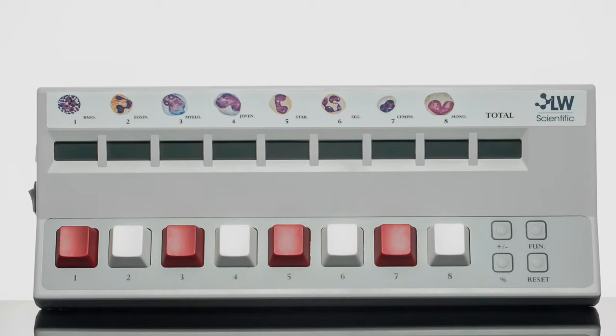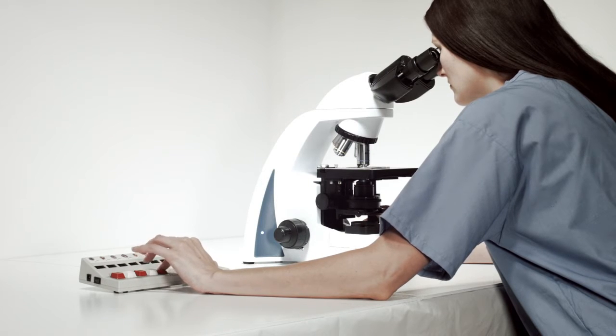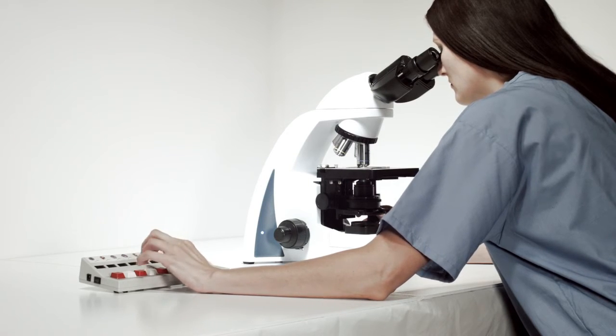Mechanical key switches when pressed give a sonic and tactile response, ensuring that each cell is accurately counted, and with practice enables you to keep your eyes on the sample at hand.